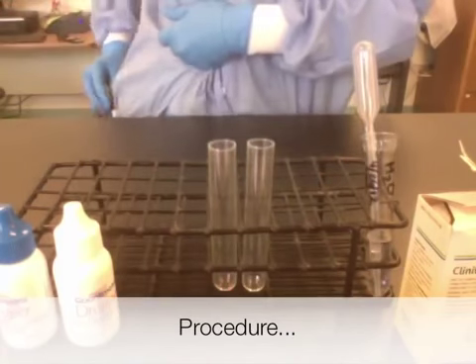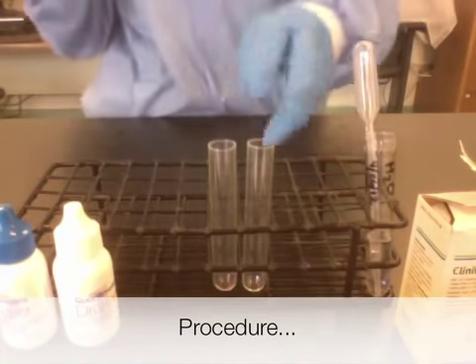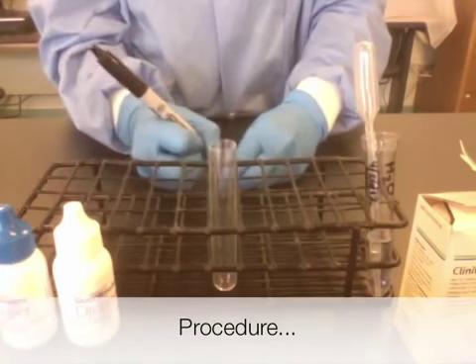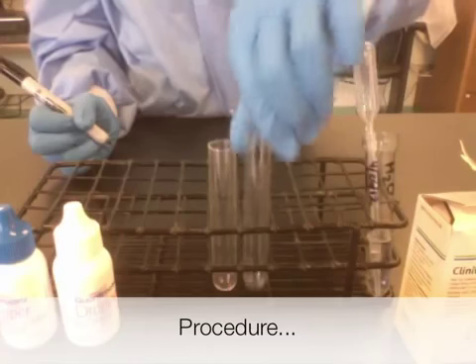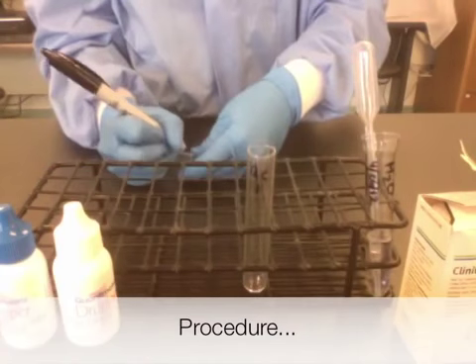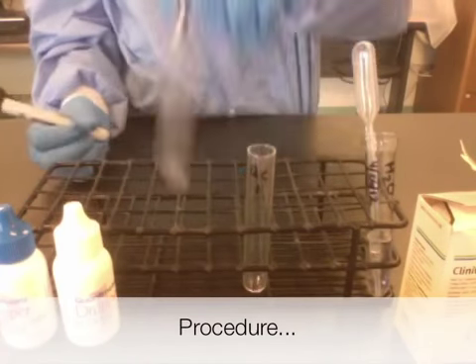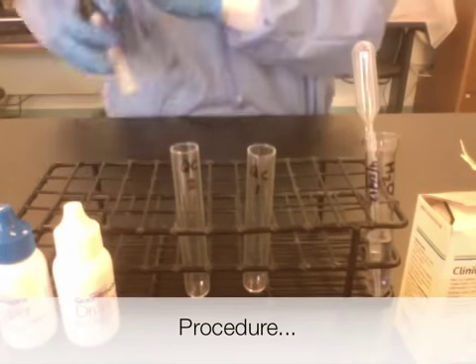First, I'm going to label my test tubes. The test tubes I'm using for this test are glass — you cannot use plastic. I'm going to label my tubes QC1 and QC2.